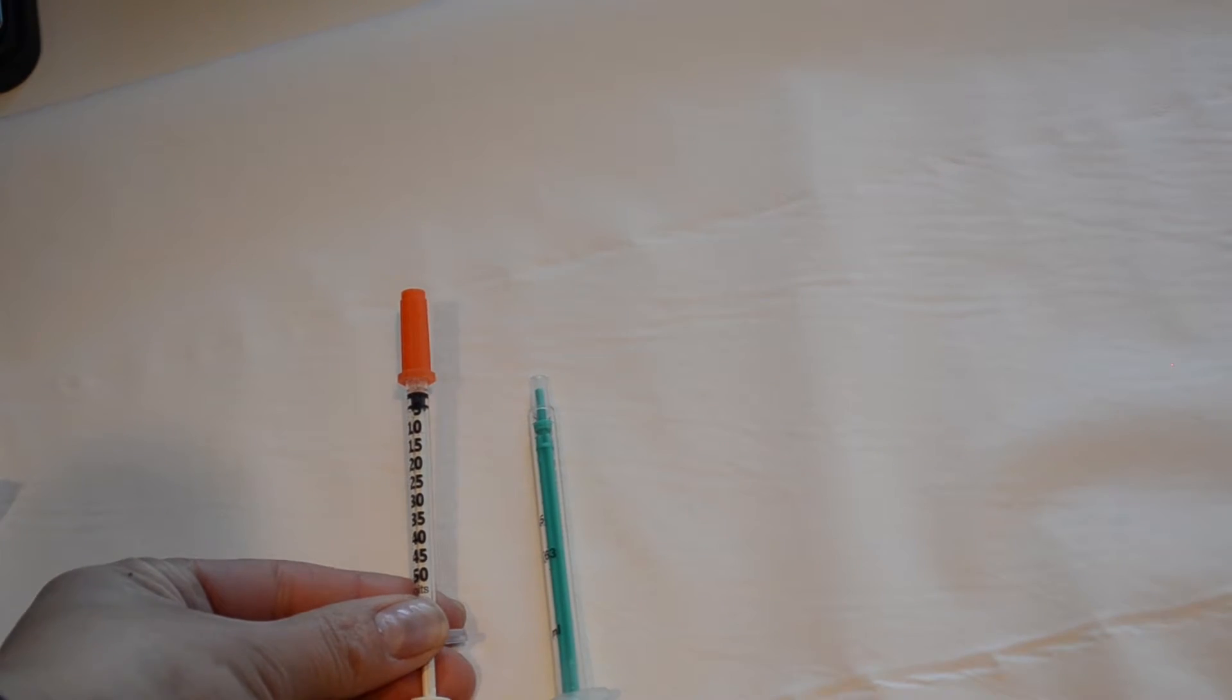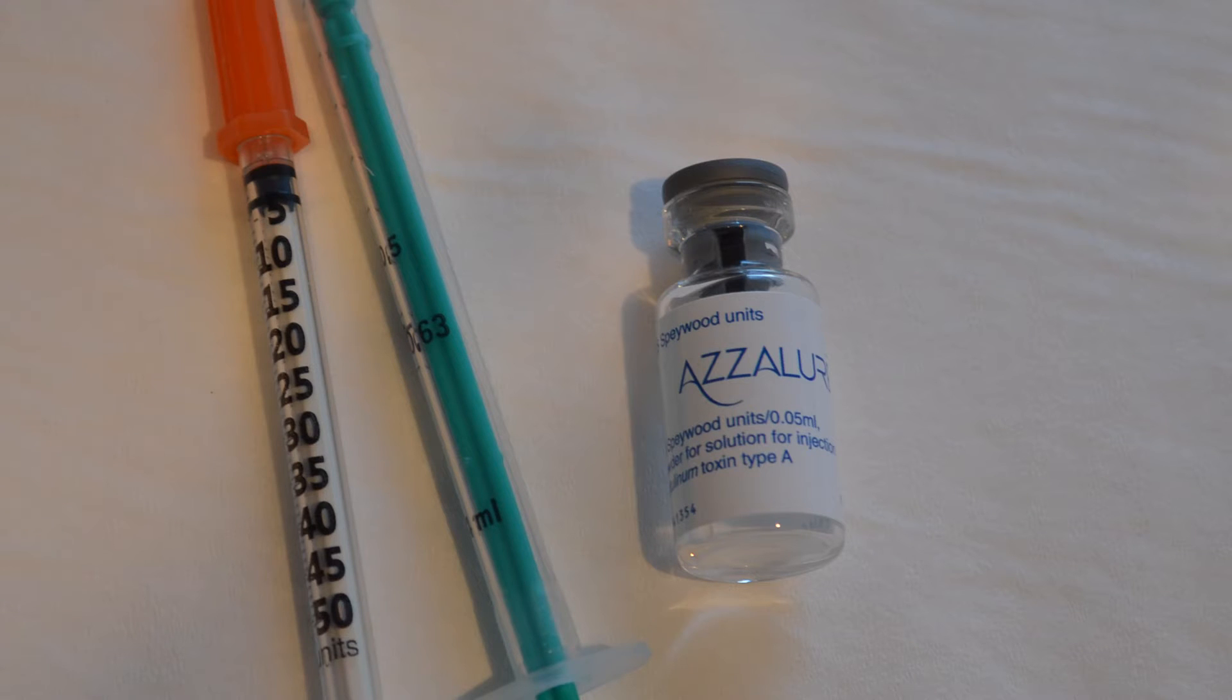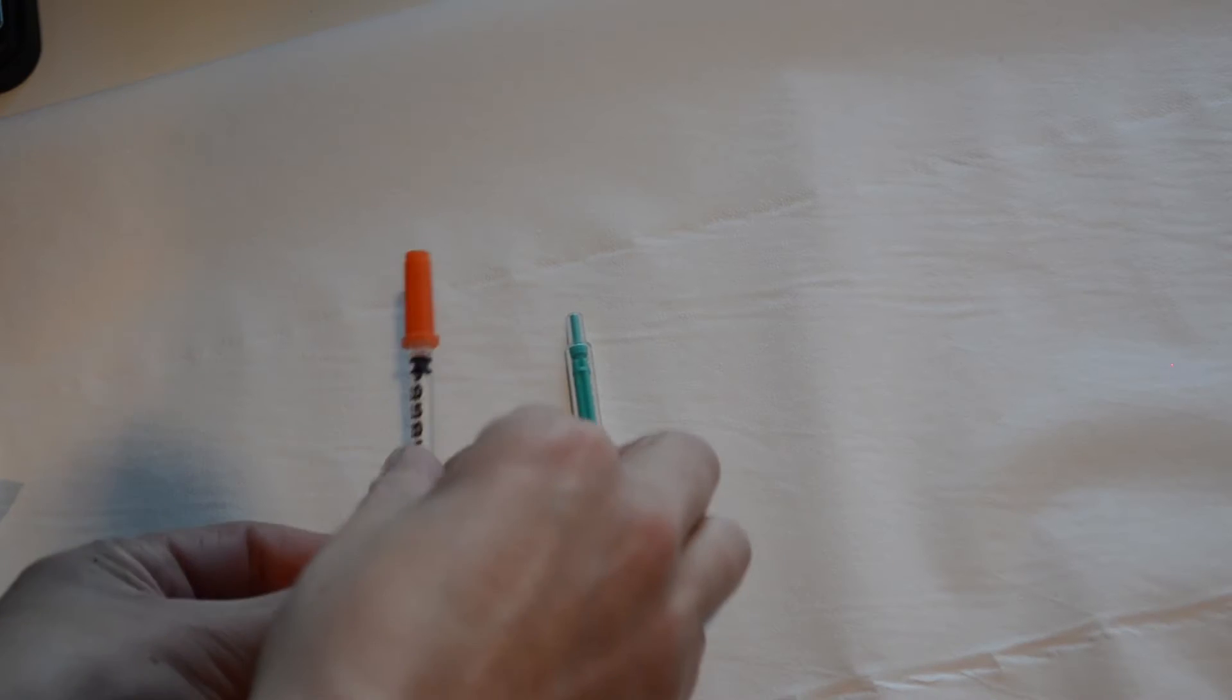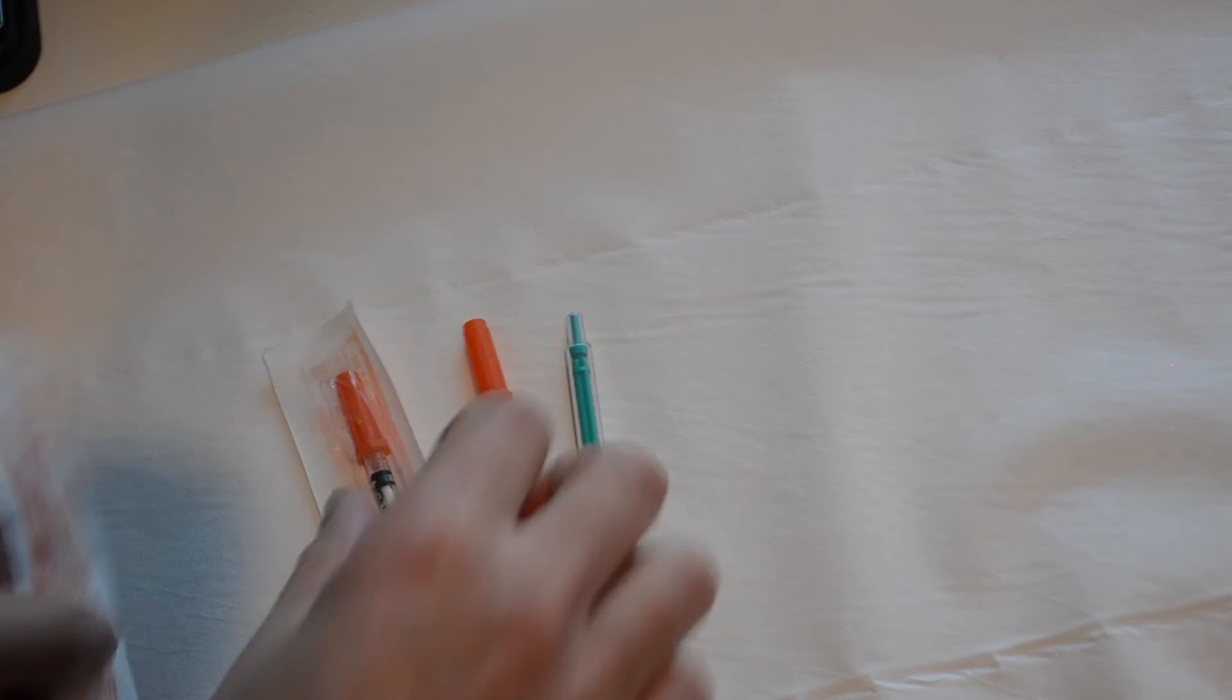What we've got here is we've got your insulin syringe and we've got your AZZALURE syringes. Now on the training day what we're going to be doing is we're going to use five insulin syringes.